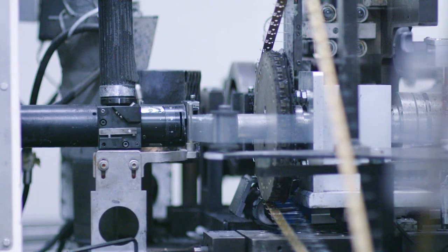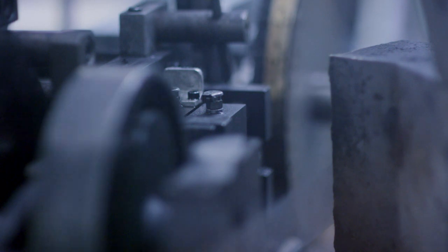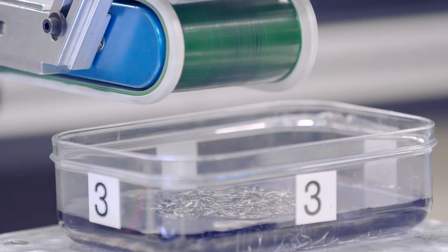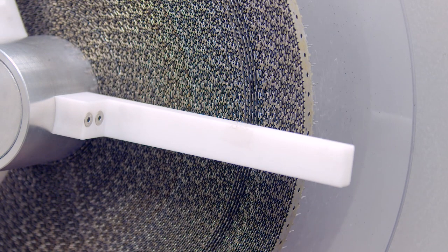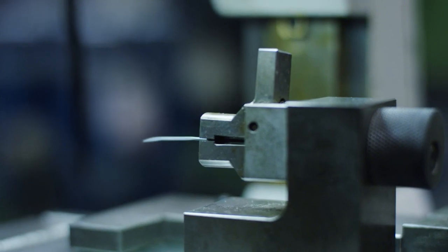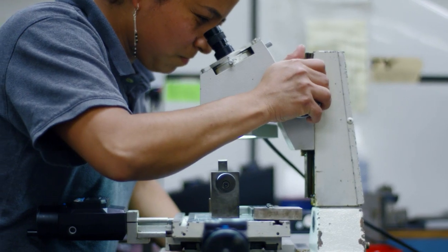In the world of suture making, a great thread deserves a great needle. When you think about your day-to-day job not just being making a needle but really affecting the lives of patients, it just puts your job into a different perspective.